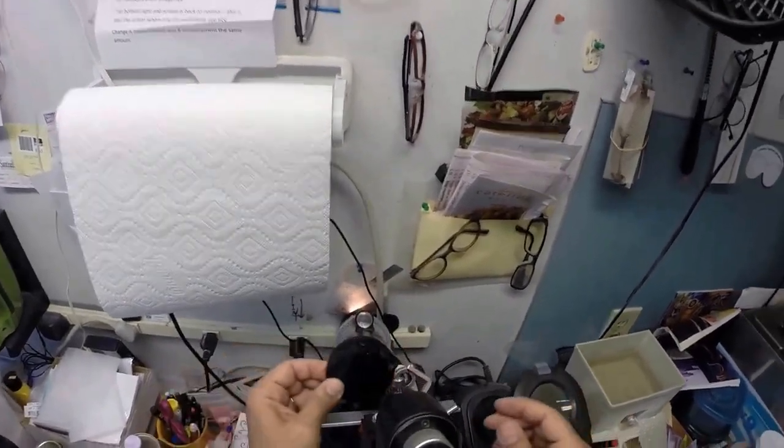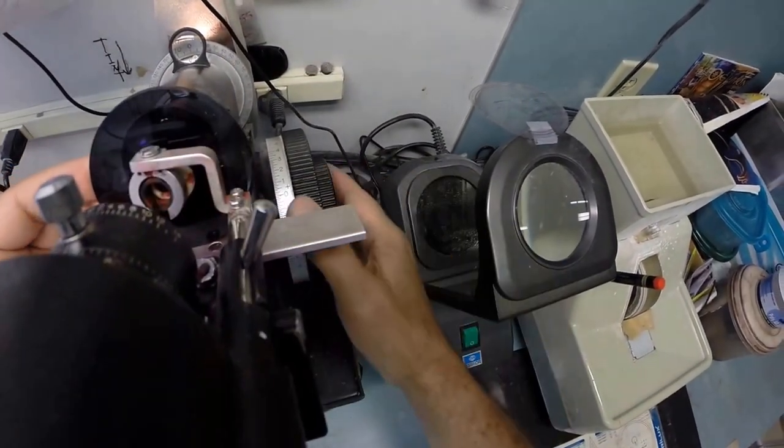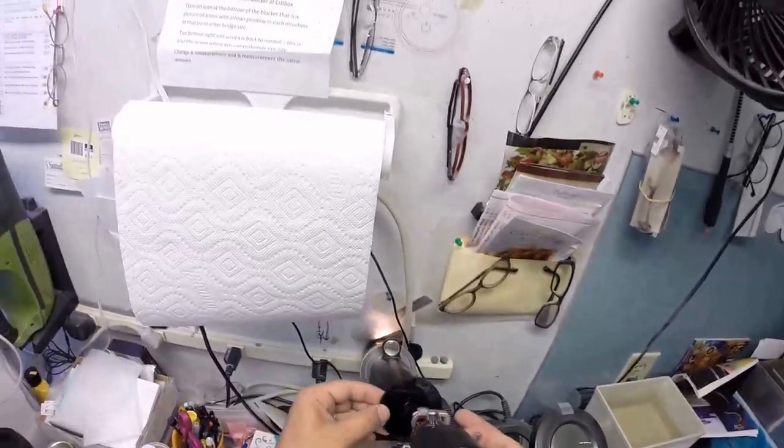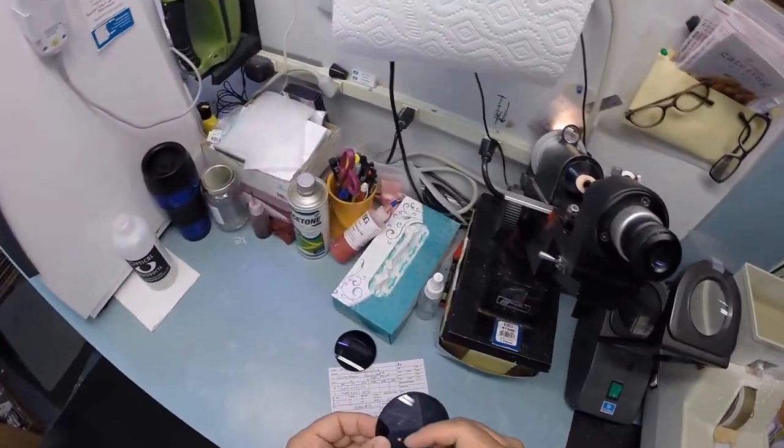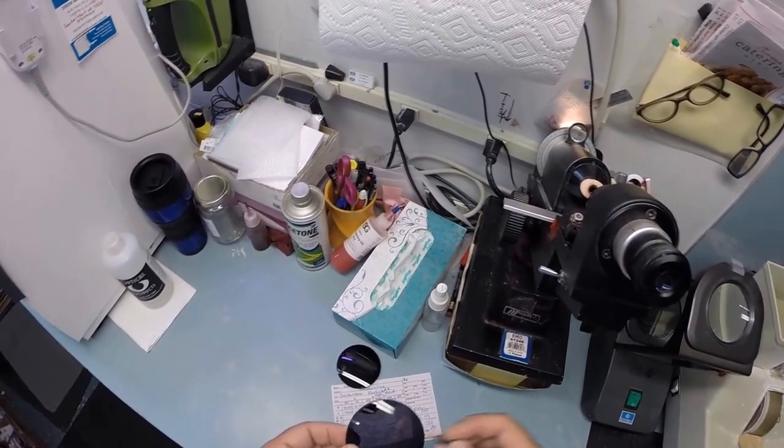Wait, this is upside down. Hang on, we're going to do it this way. This is the left lens. Had the lens upside down, but that's okay. It's the same meridian either way. Put the three dots on there. One, dos, tres. And we're going to label that one L for not right.